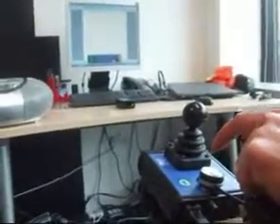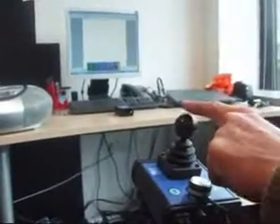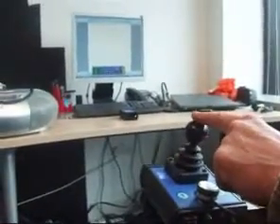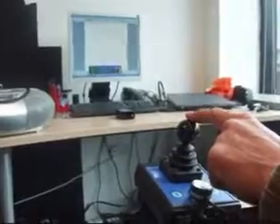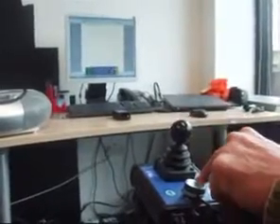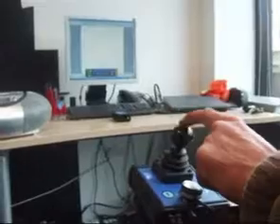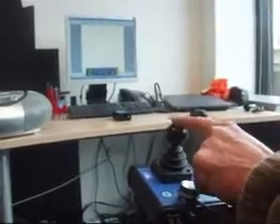Pressing a switch allows the joystick to go from driving the chair to controlling other features of the chair, such as lights, chair actuators, mouse control, or control of an external device.